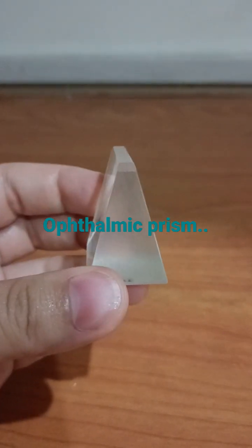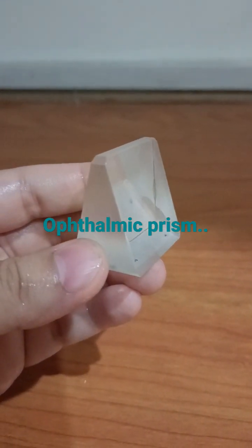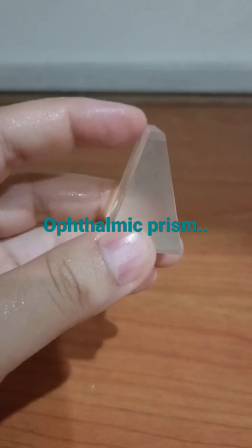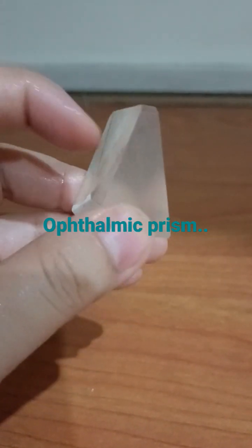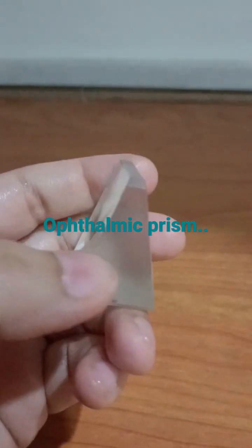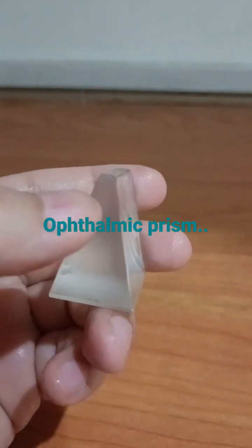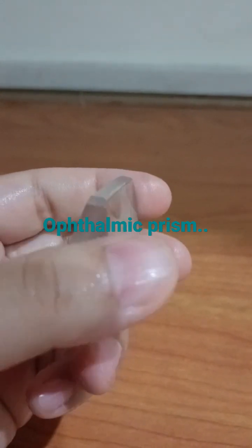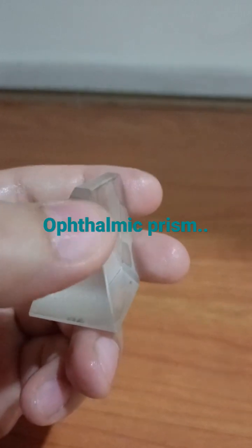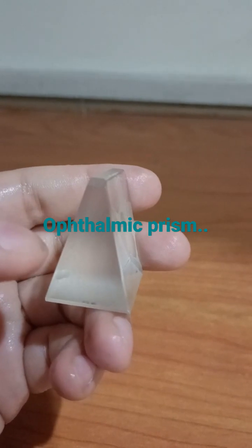This is an ophthalmic prism and it's the simplest form of a prism. It has two flat surfaces — here you can see two flat surfaces: one, second. These two flat surfaces are joined together by an angle. There is an angle between these two flat surfaces, and this angle is known as the apical angle or refracting angle.